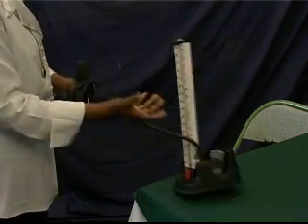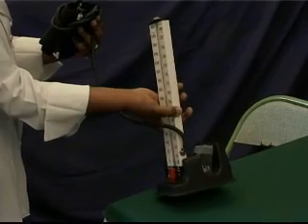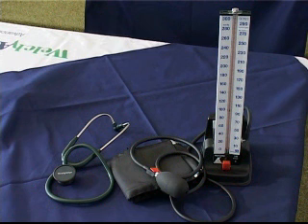All blood pressure devices are sensitive and every attempt should be made to avoid bumping or dropping the unit. Ensure that all cuffs, bulbs, and tubing are manufactured from latex-free materials so there is no danger of latex allergy reactions from either the patient or the clinician.